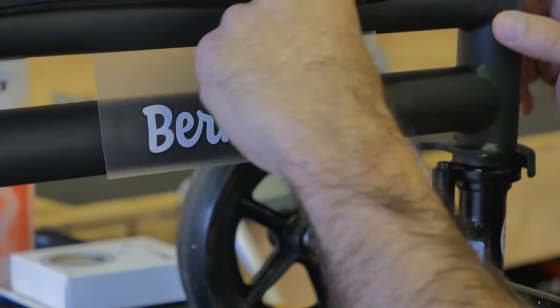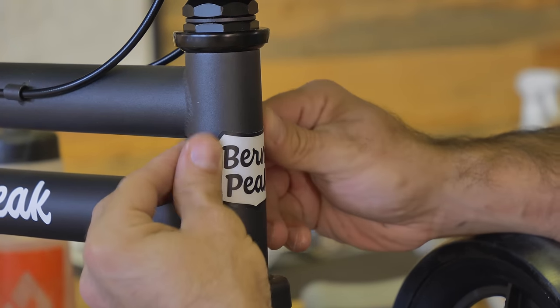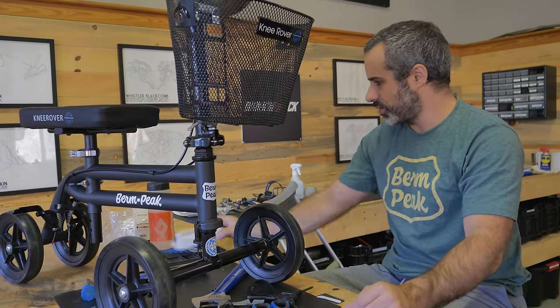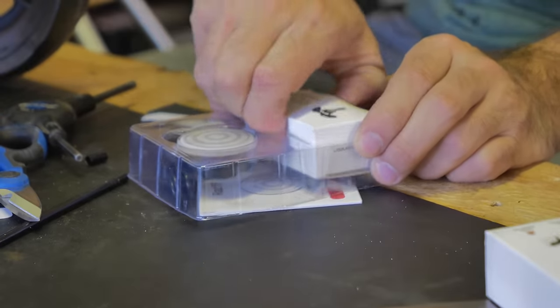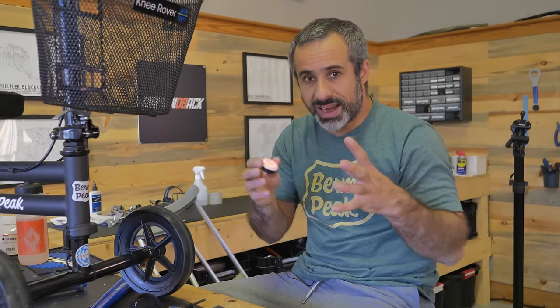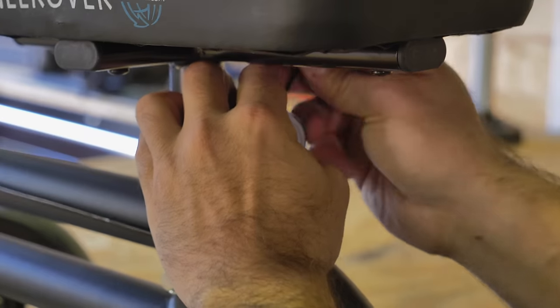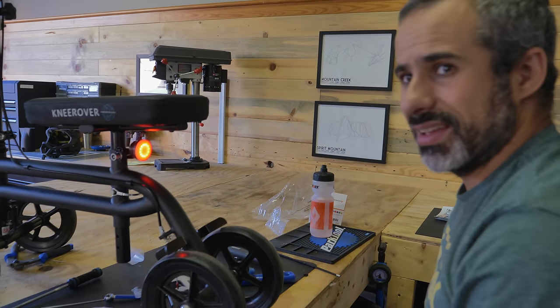What do you think of a nice Berm Peak sticker right here? That's the perfect spot. Let's get another Berm Peak sticker up on the head tube — oh yeah. Now we got ourselves a knee scooter. I do have this smart taillight from Raz Pro. Attaches to the saddle, looks like it's got a little USB charger — that's super nice. If I find myself making my way from a store through a parking lot at night or something. Let's see if we can zip tie it into place back here. This is actually more secure than you might think. Oh yeah, now we're talking.